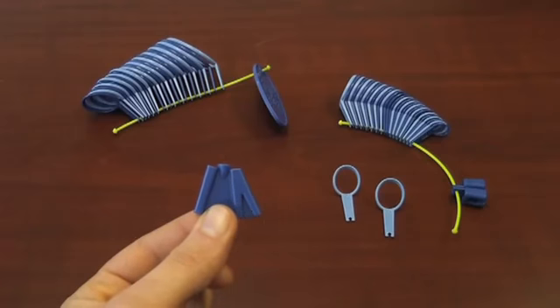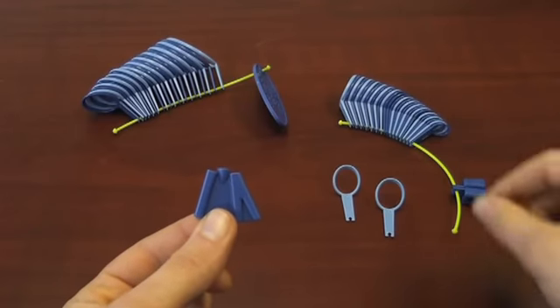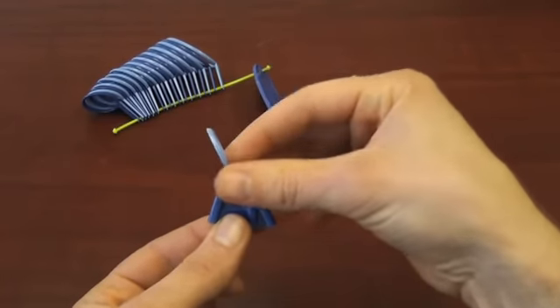The sides with two slots will usually be used for the proximal or larger ring, and will position the ring at either 15 or 30 degrees.